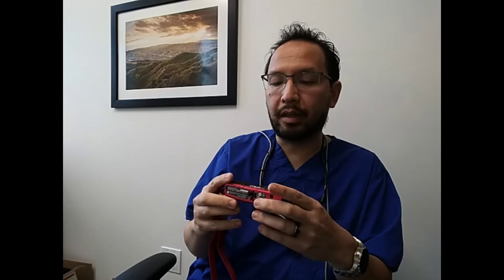Some final thoughts: I really like this camera overall, especially for the price point. It kicks the butt of any PhotoMed setup — that $1,600 Canon setup from PhotoMed — and it's certainly going to give most economy setups a run for their money in terms of image quality. That said, some limitations: it is a point-and-shoot with a small sensor, basically the size of an iPhone sensor, which is big for a smartphone but really small as cameras go.